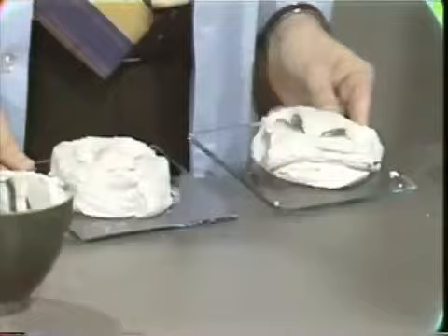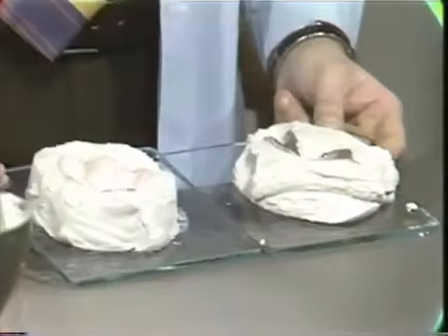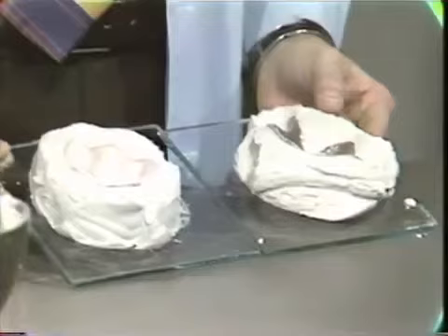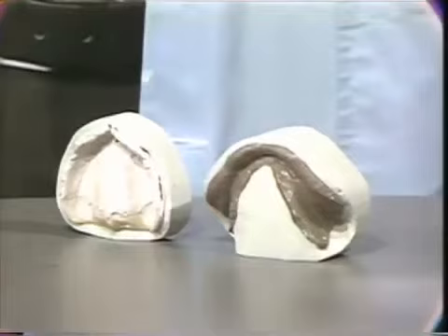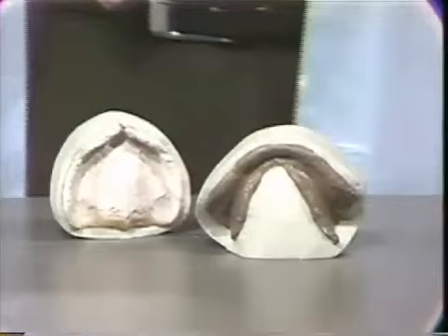Now I'd like to show you both of these — you'll see there's a tremendous excess of material at this point, and we have a little bit of the pumice plaster mixture inside of the impression. I'm going to go off camera for a few minutes and trim these with a model trimmer, then bring them back and show you what they will look like after trimming. This impression plaster pumice mix is so very soft that it trims very, very easily.